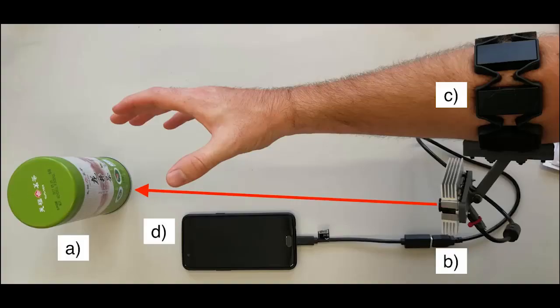Therefore, we present a portable, low-latency, automatic system for grasp type selection. This system can be combined with a prosthesis or orthosis to provide an automated method for changing the grasp type based on the user's target object. For more details on the methods, accuracy, and experiments used, please refer to the attached paper.